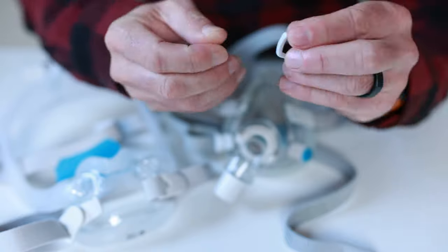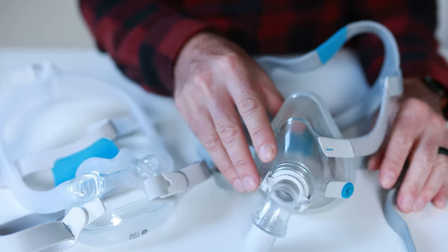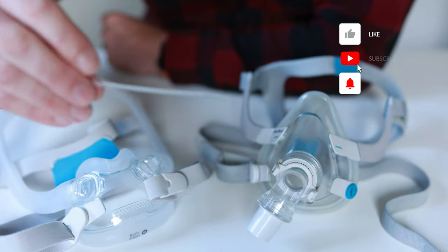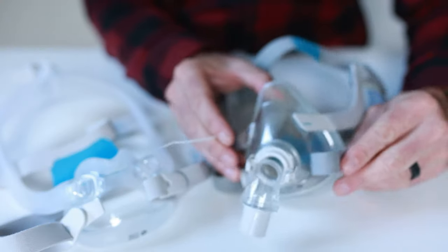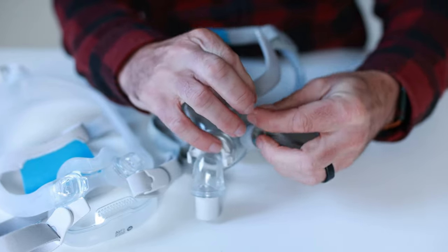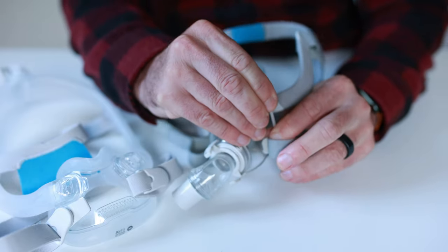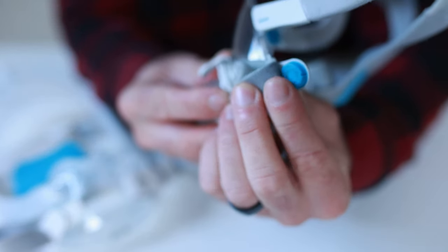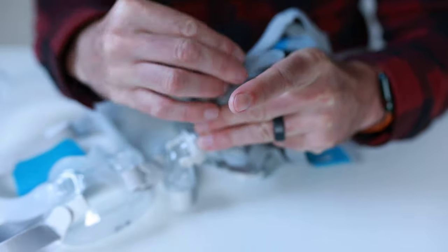So let's just say this clip is broken — how are you going to attach it? Well there's an old saying: there's nothing you can't fix with a cable tie or duct tape. We're going to use a little cable tie, make a little loop here, and then it'll just lock in behind the magnet. Done. You can see the cable tie is locked in behind the magnet — it's not coming off. You can still tighten it up if you need to.